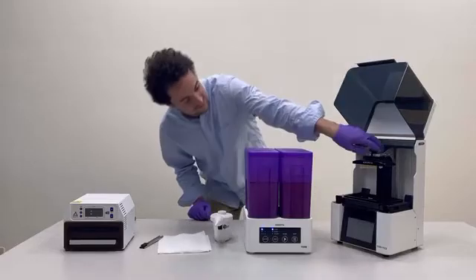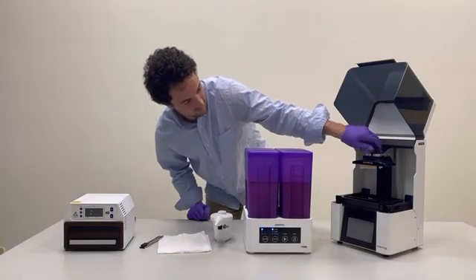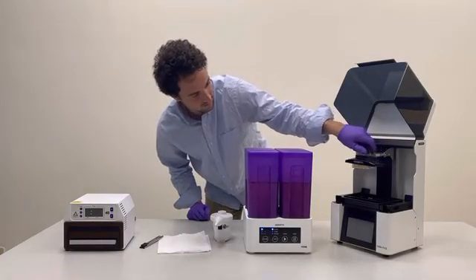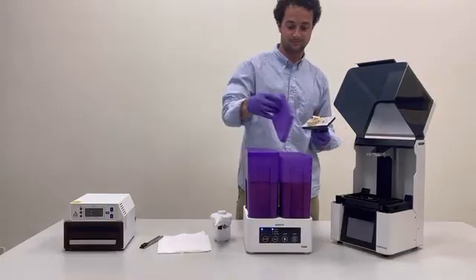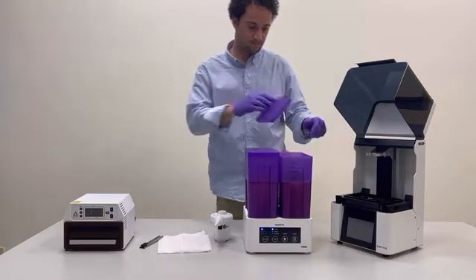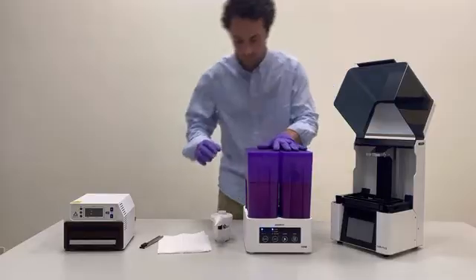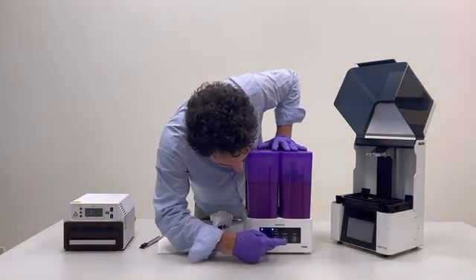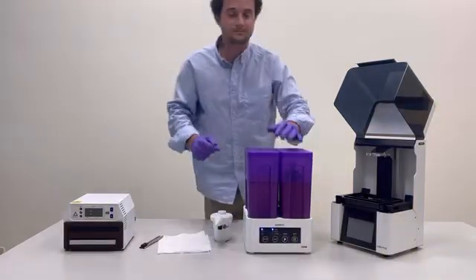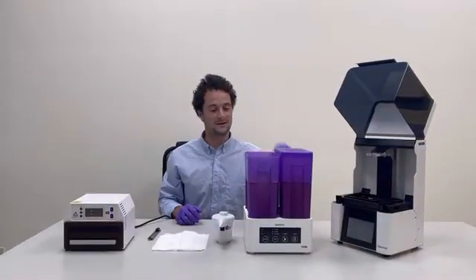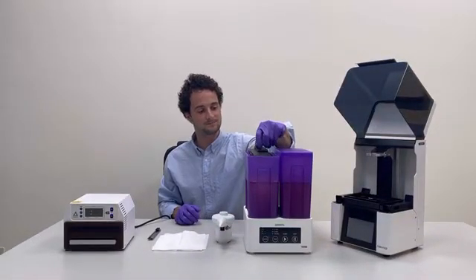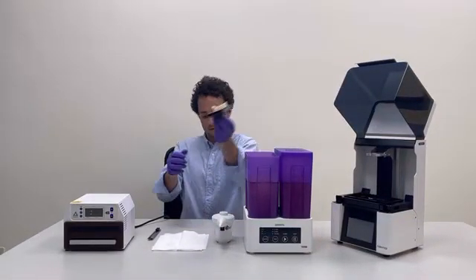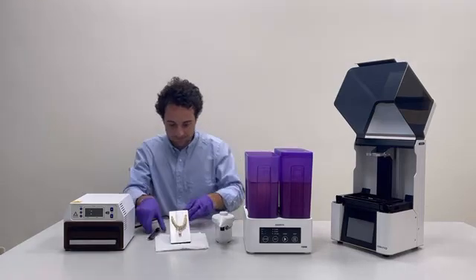Print is ready. Let's clean it first. You can use three minutes, should be enough. It's clean. We remove all the resin, so we can cut it off.